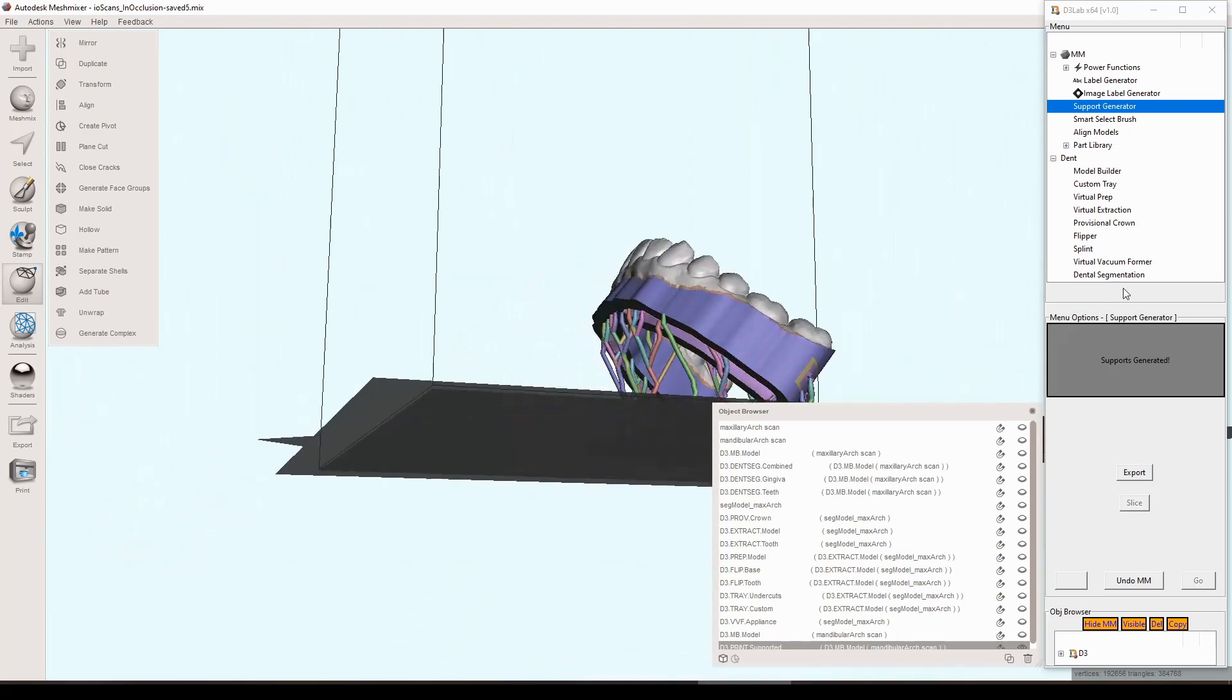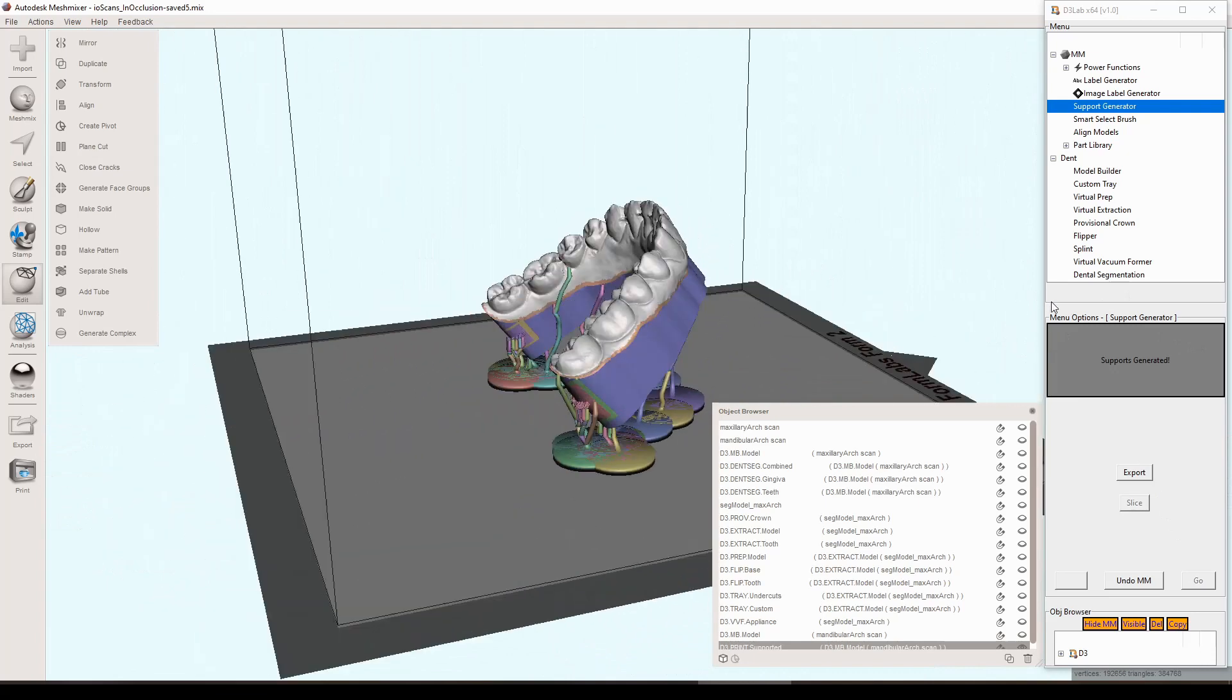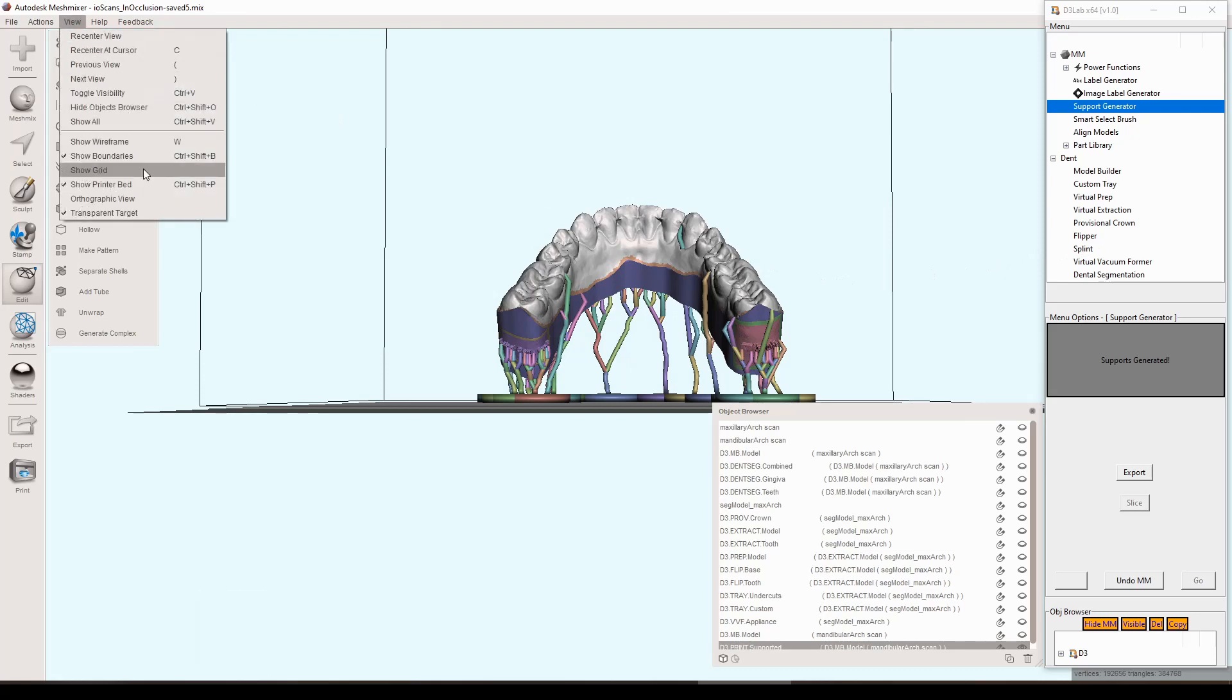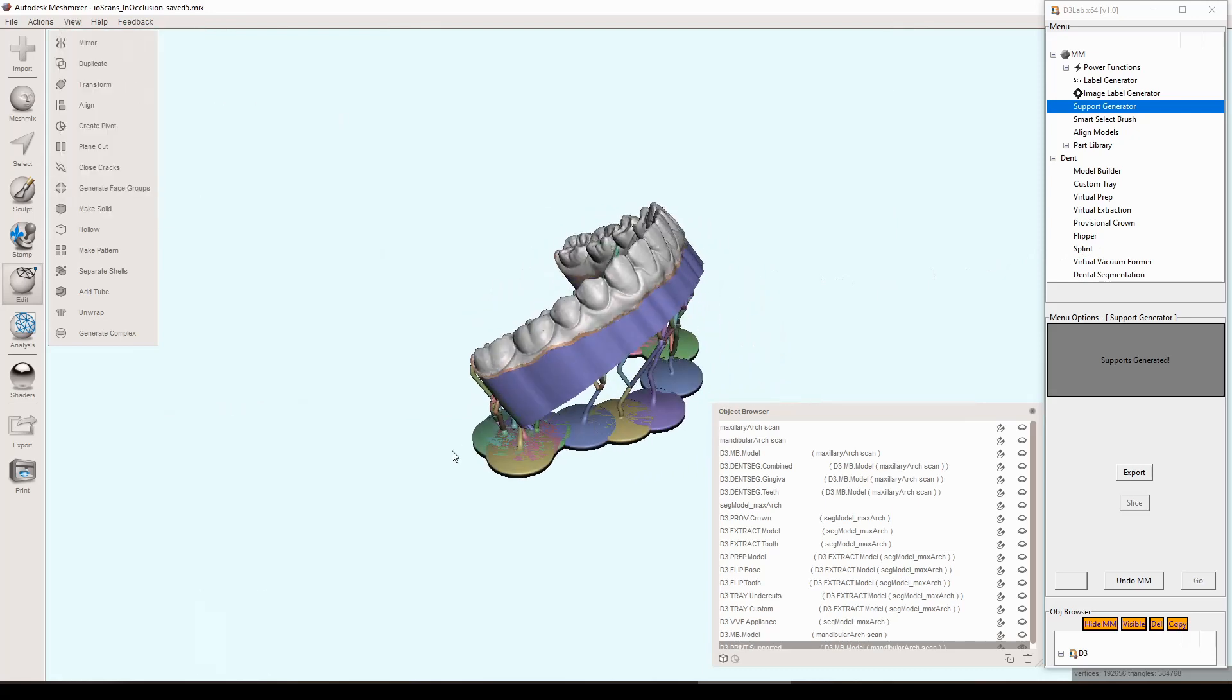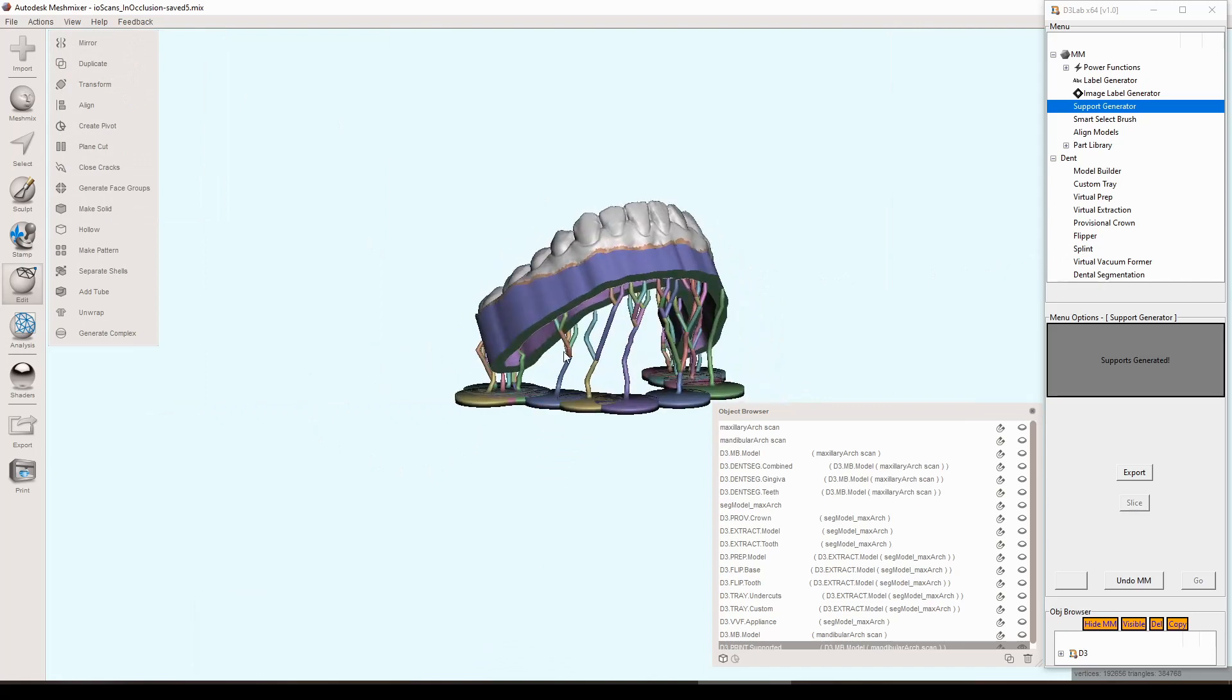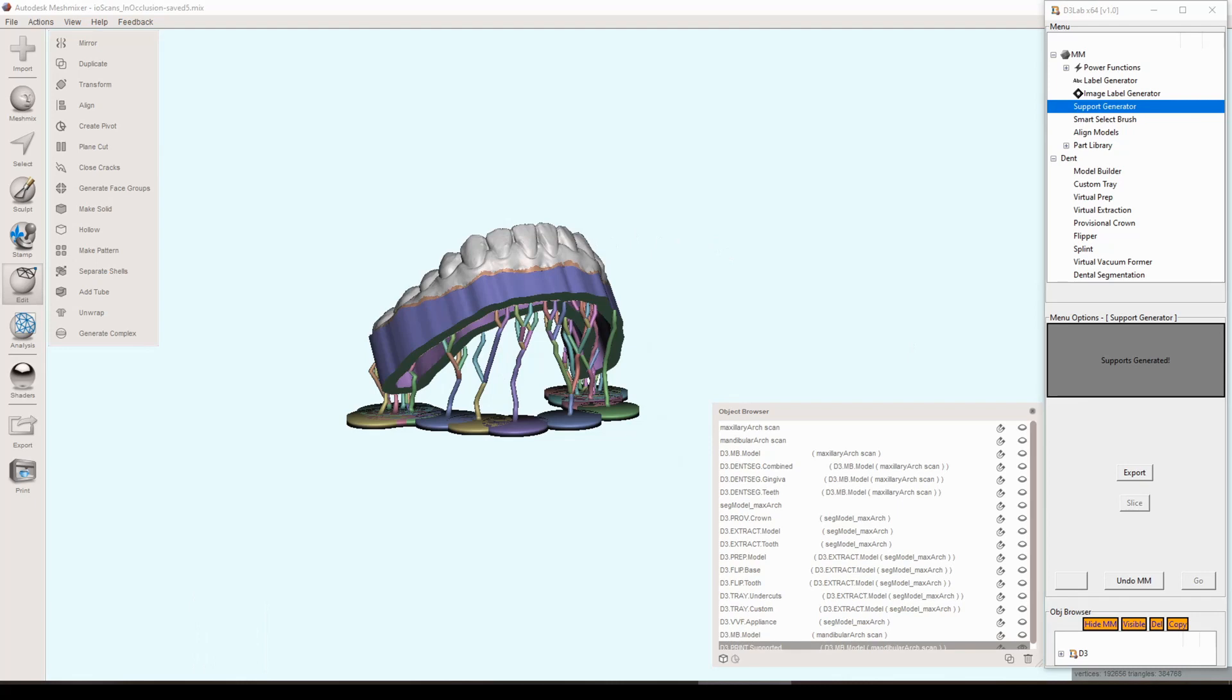That's the end result there. It's not perfect. Again, you know I don't really like those little supports that are kind of by themselves connecting the model to the model, but I guess this would be like in a pinch, at least you got this. And this is a fairly complex model. If you had the virtual vacuum forming object that we created in the earlier video and you flip that kind of with the exterior side down and then you ran this tool, I think it would be a very simple looking support tree and it would print very cleanly. Same thing with probably provisional crowns and things like that. This is just a hollowed model with some weird geometry so the tool kind of creates these extra little supports in places that don't really need to be there, but either way it's a really good starting point for a lot of the supports needed for 3D printing.